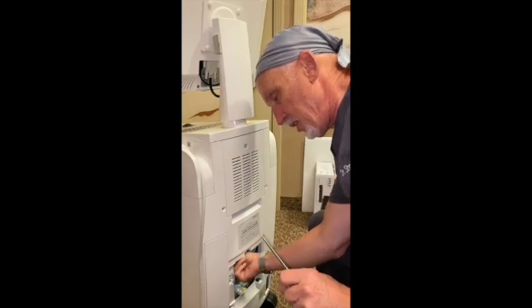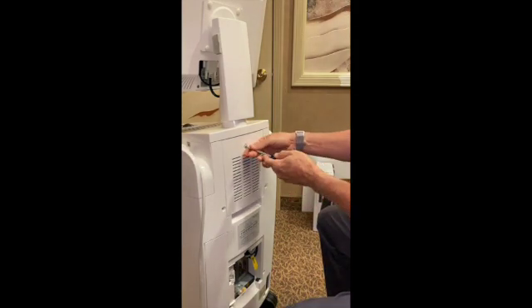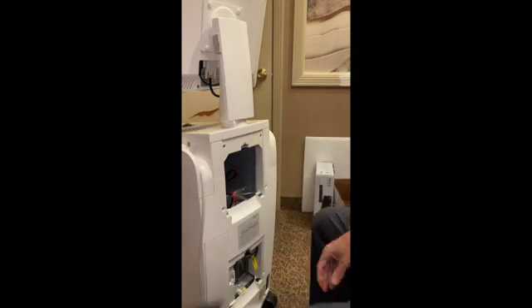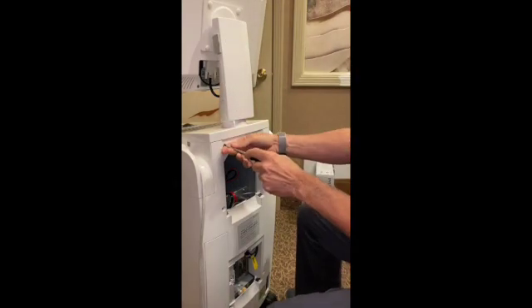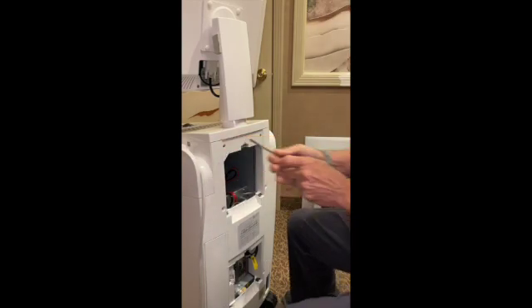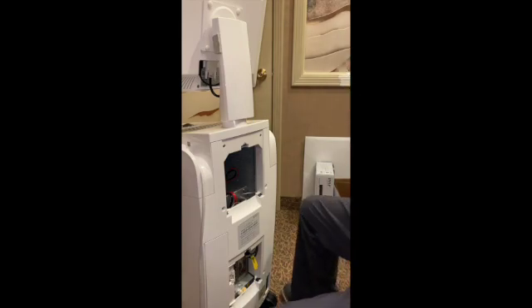There's another one that plugs in there that you can unplug with your finger. Then lift it out — you can see what it hooked up to. Then you go to work with your T20. I like to sometimes get a little ice tray or something and put all the screws in it. In this case, I'm just going to put them up on my desk.